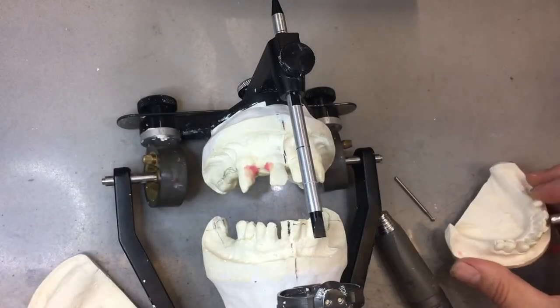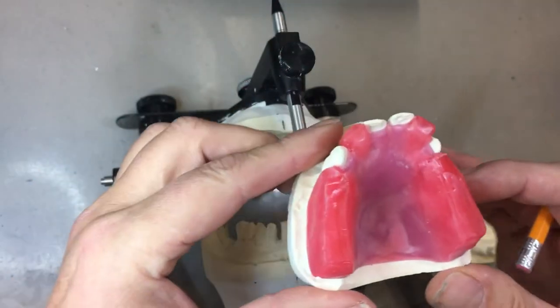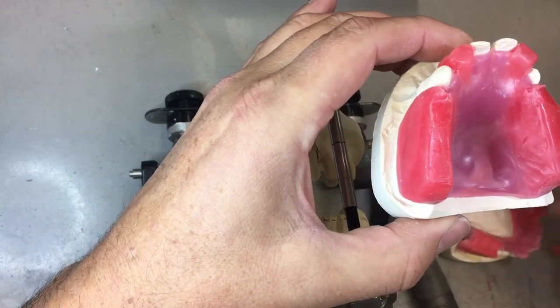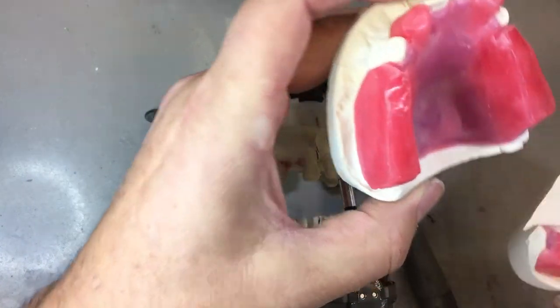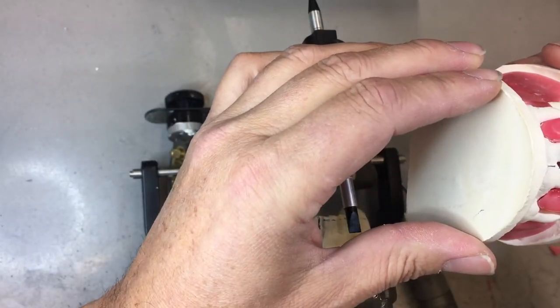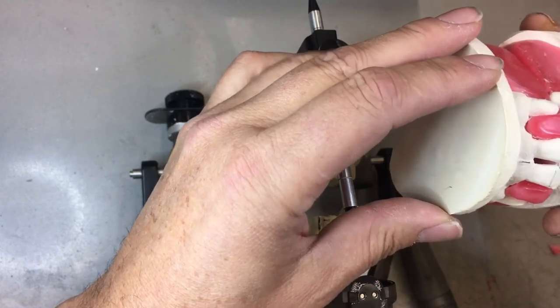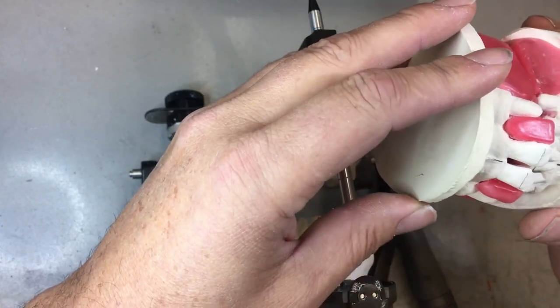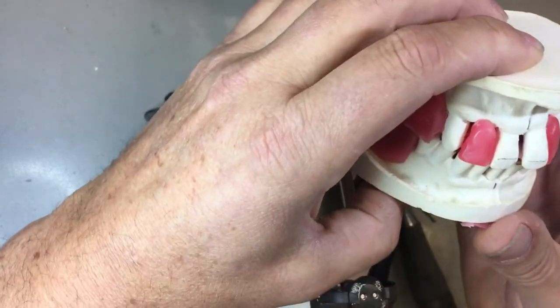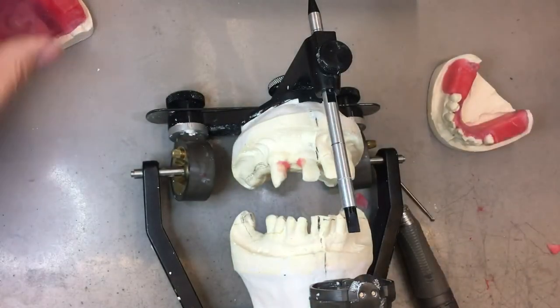What did we make for the dentist? We made some occlusion rims. And with these occlusion rims, the dentist established a new vertical dimension. We don't know if this vertical dimension is correct or if the patient can tolerate it, but we have to increase the vertical dimension, not just to restore the patient's occlusion, but to restore the whole stomatognathic system, the TMJ.